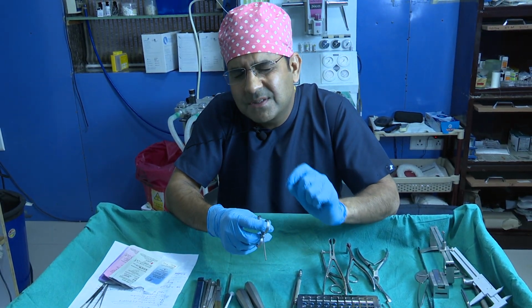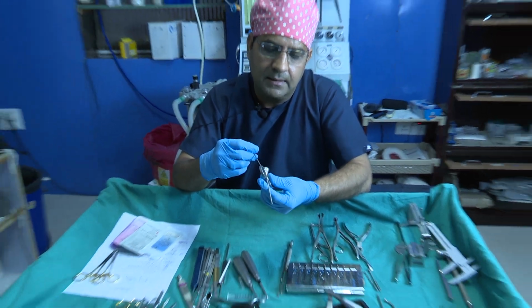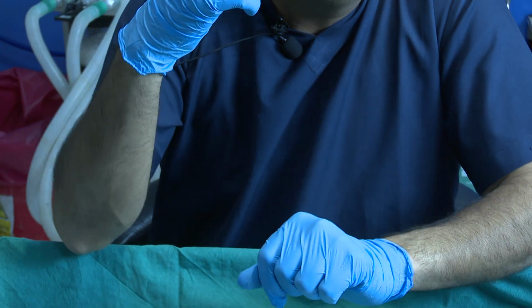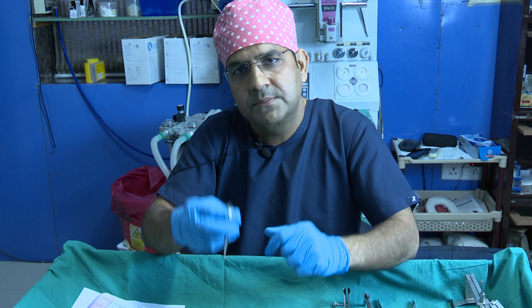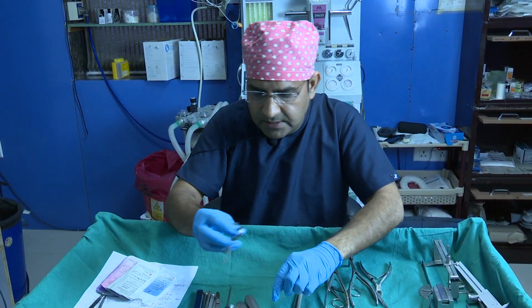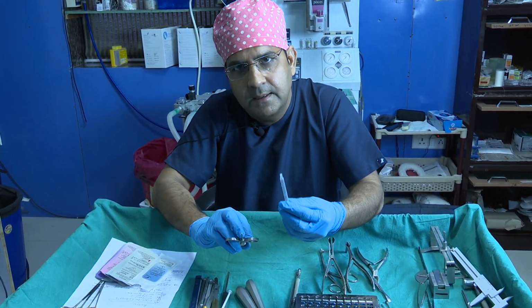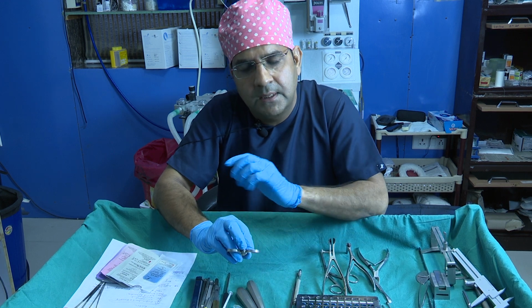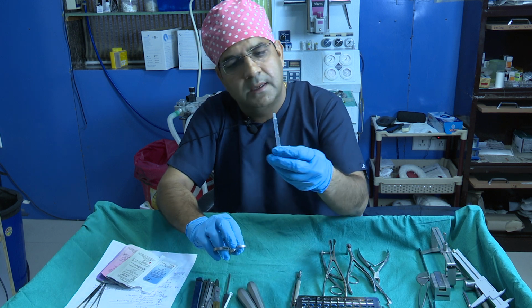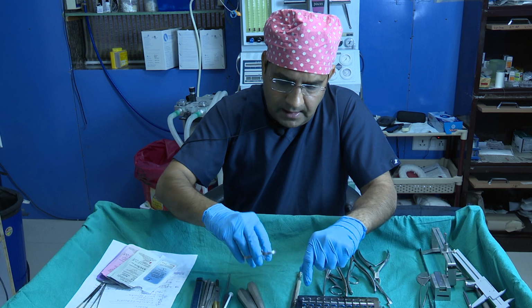When you have some fine diced cartilage, you fill it in, and if you need it sometimes in the radix area, you can just fill it. It does the same work as an insulin syringe, but the insulin syringe is too big. Sometimes after putting in a big dorsal graft, it is very difficult to negotiate the insulin syringe, so you can use this small cartilage plunger.